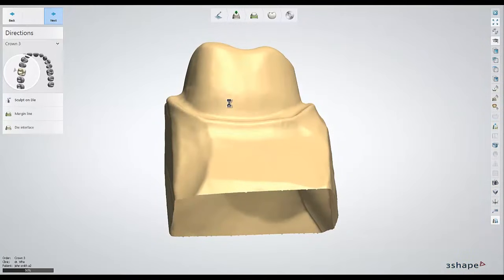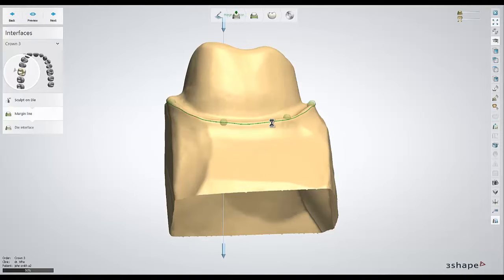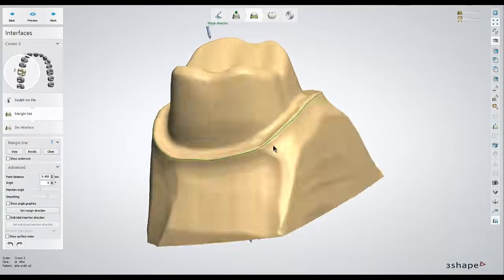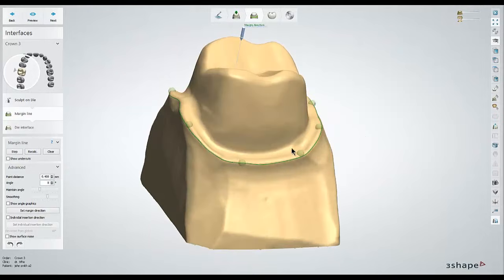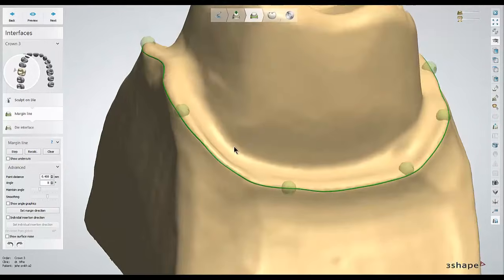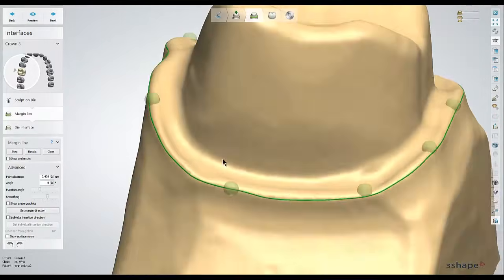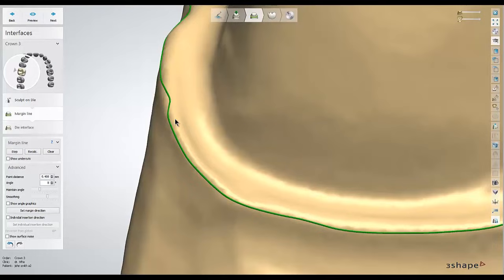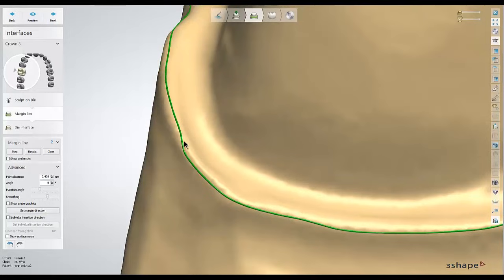It'll come up with a margin line automatically as well, and it usually does an okay job as long as the die has been ditched a little bit. To adjust the margin line, you can do single clicks to make a quick change, or you can hold down the left click button to draw a new line. I'll just go around making some adjustments.